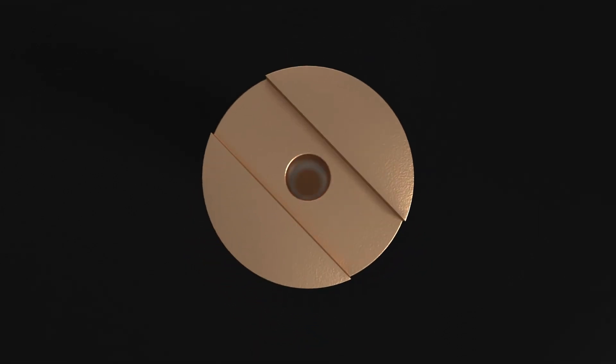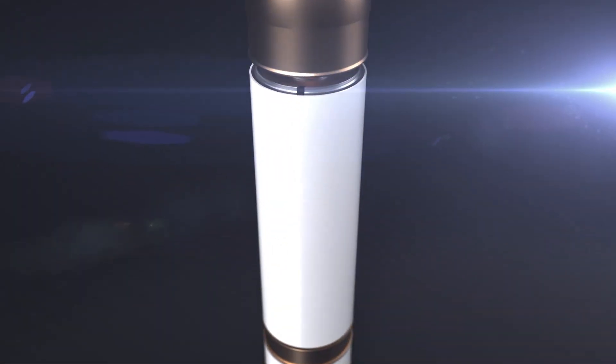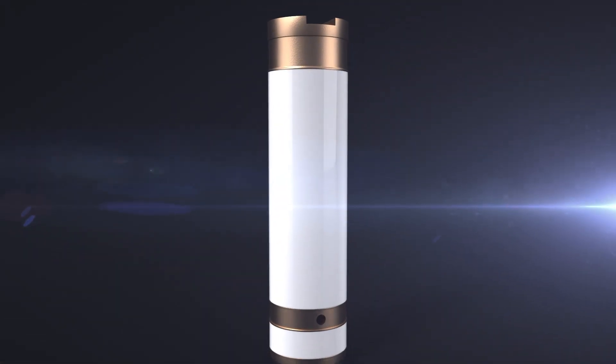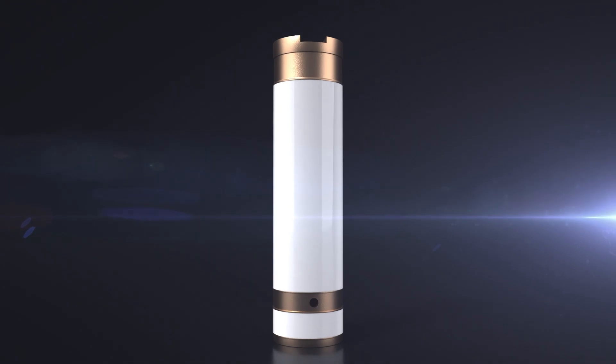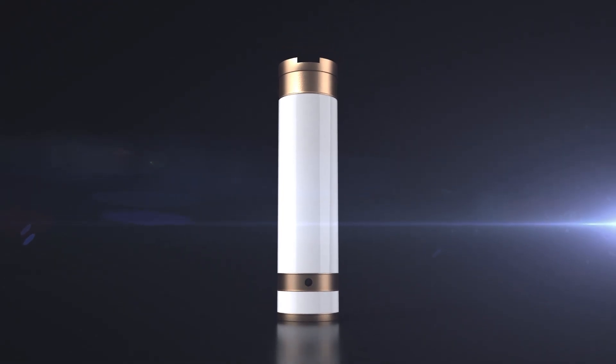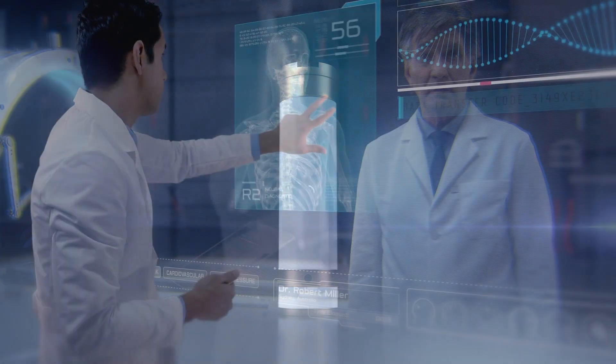Compared to the filament analog type X-ray source, it is a new technology that enables human-friendly low exposure and ultra-high speed operation control.